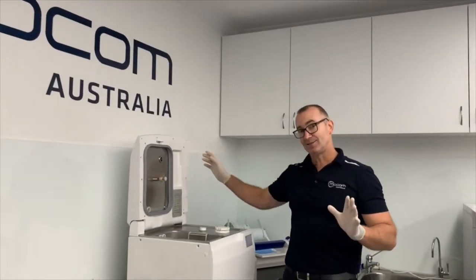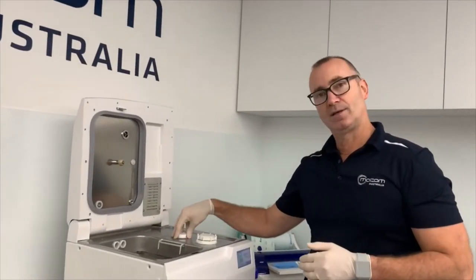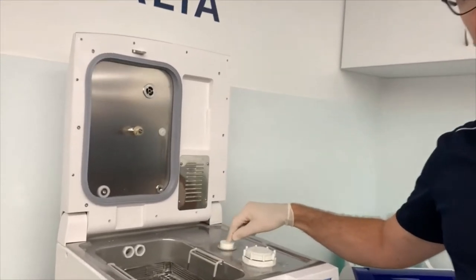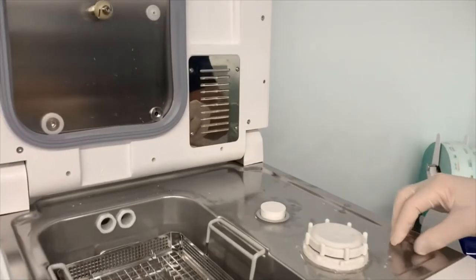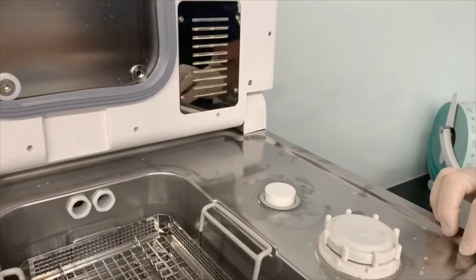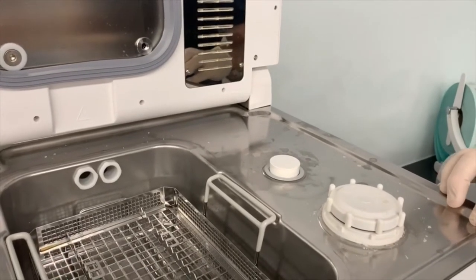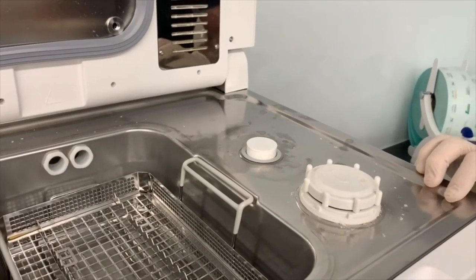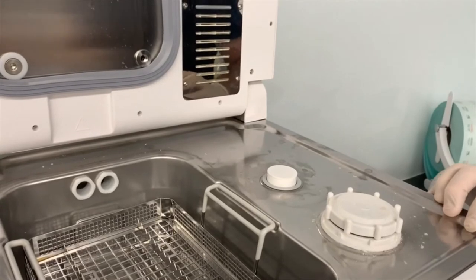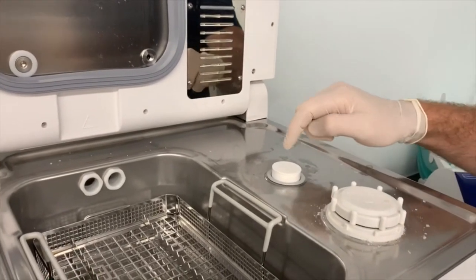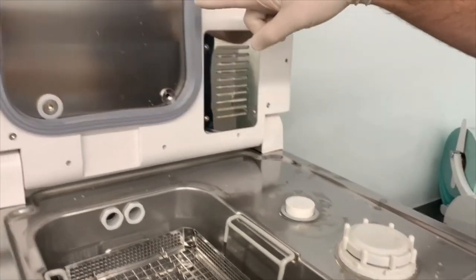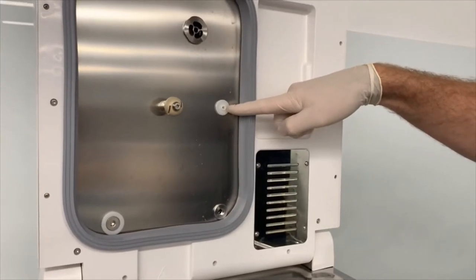The main thing is to pump out the detergent that's sitting in the detergent reservoir. If it's left too long, too many weeks with detergent in the hydraulic circuit, it can crystallize and make it very difficult to pump when it's woken up again. So that's the detergent reservoir and this is where the detergent comes out of during the cycle.